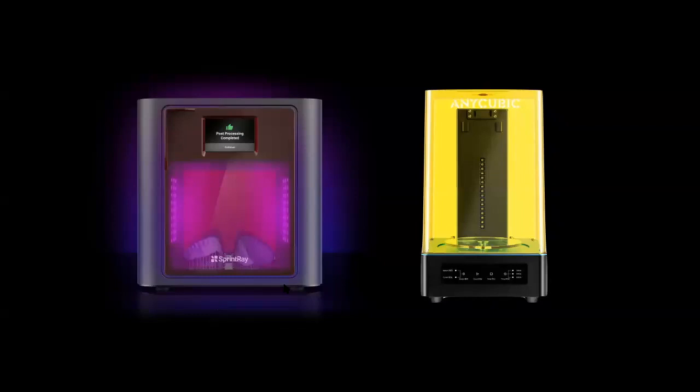But even having to purchase the resin and this additional curing unit, it still makes it less expensive than buying the whole Sprint Ray unit to do the whole thing. But again, nothing against Sprint Ray; they make great products. If you decide to go with their full system, that's great. I'm just sharing with you the way that I do it and the way that I've managed.